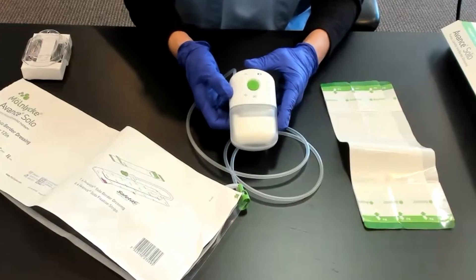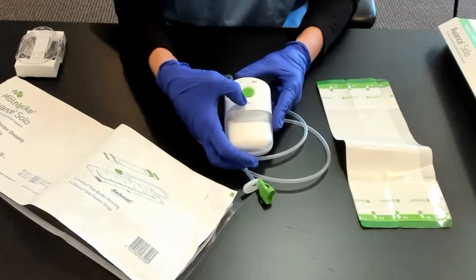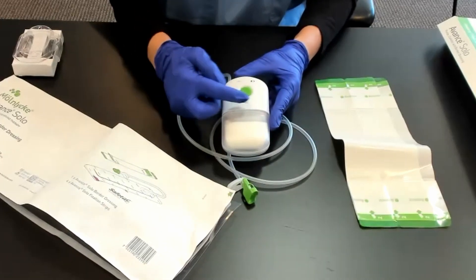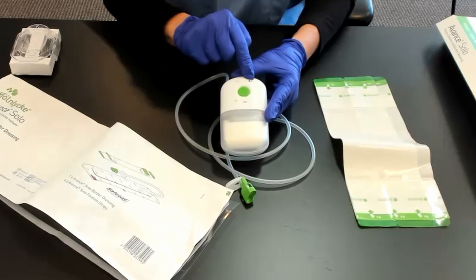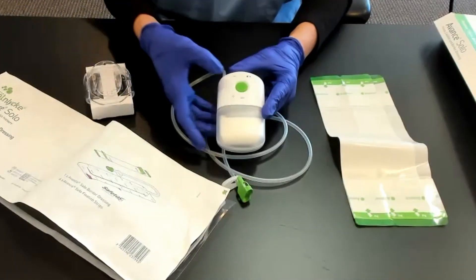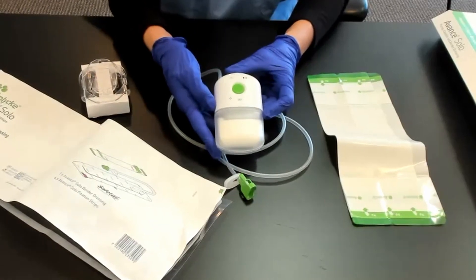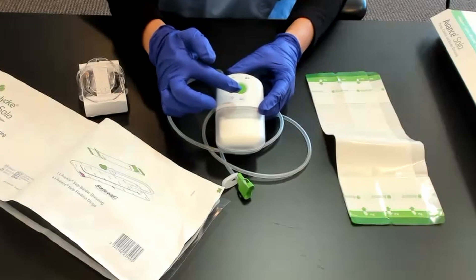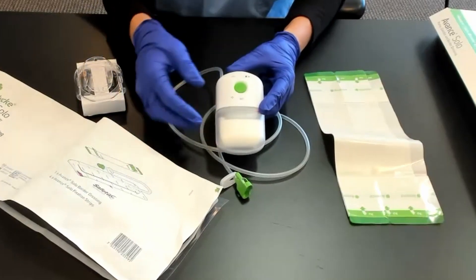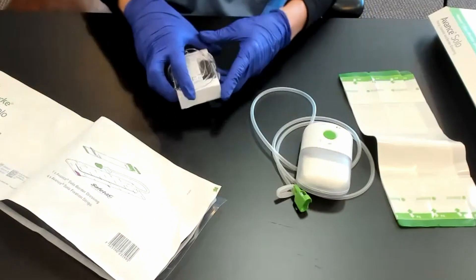There are a couple of light indicators on this pump that will help you. This indicator means you have a leakage alarm — it will illuminate underneath there. This one means you have a blockage alarm. And this one indicates your battery is getting low — they actually send replacement batteries, which is nice. To start and stop it, just push the middle button. Any of these alarms will also make an audible noise.